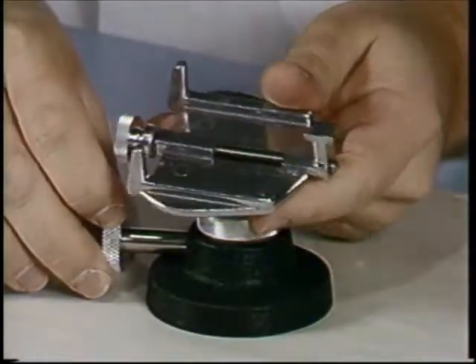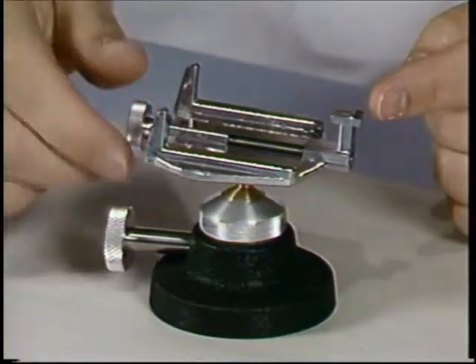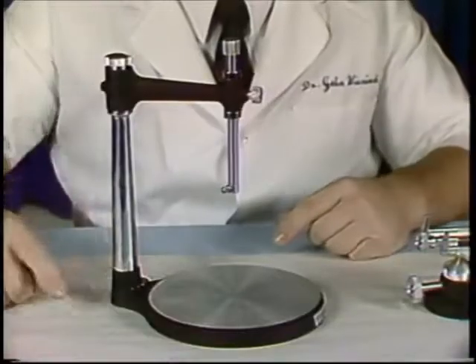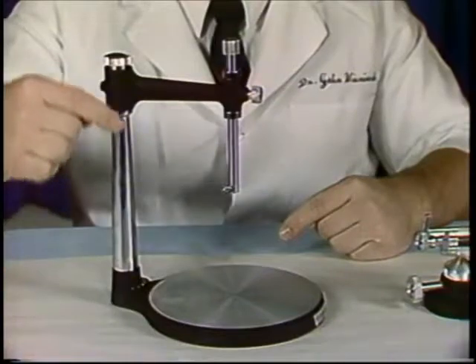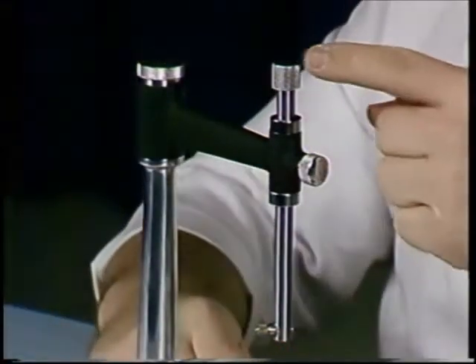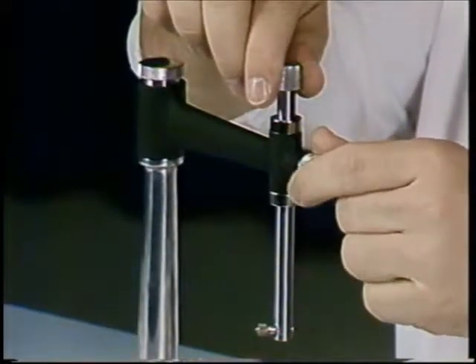The surveying table, to which the cast is attached, has a locking knob which allows the table to swivel. The cast is secured to the table with a locking pin. The surveyor base, vertical arm, horizontal arm, a movable vertical spindle. The spindle moves up and down and may be secured with a set screw.